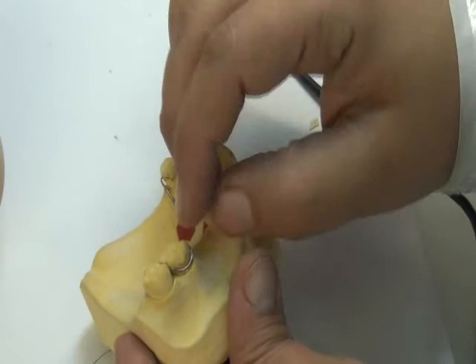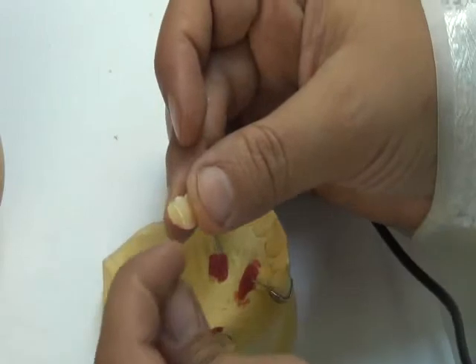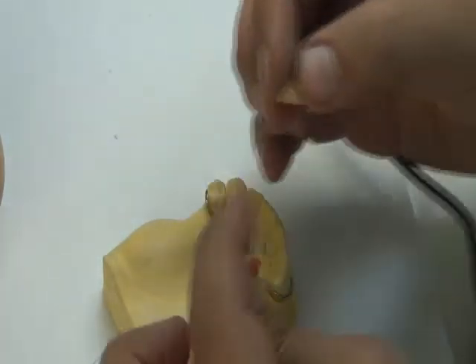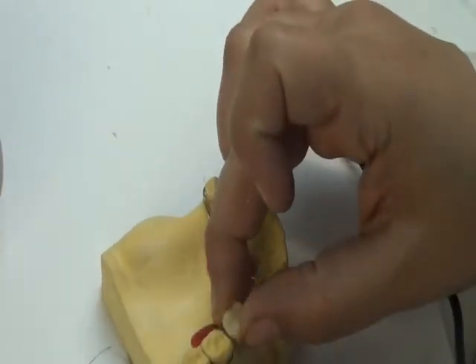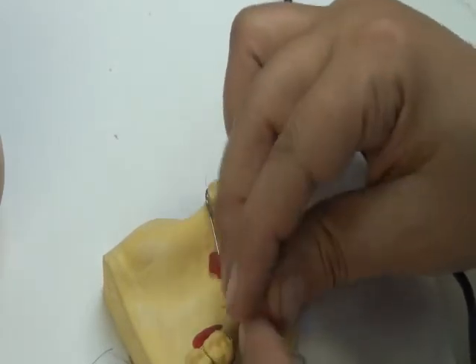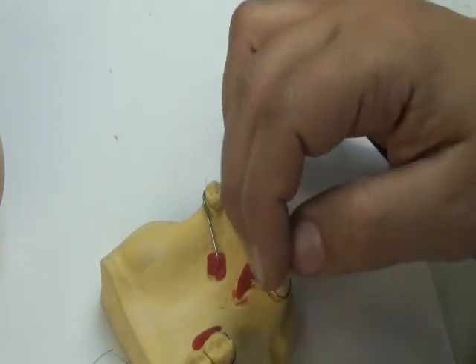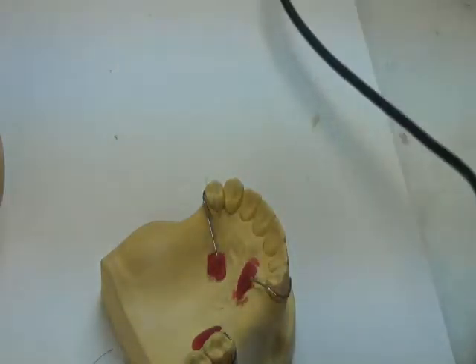If I find that my wire is almost okay, but there's still some interference, I am allowed to cut a small groove in the artificial tooth to aid this contact. So I might cut in here a small groove using the bur, and make sure that the tooth still comes in contact and it avoids the wire. This is allowed without ruining the buccal shape of the tooth, so it doesn't appear buccally. It's only on the lingual side, the proximal lingual side, where I can trim. But otherwise I should bend my wire away from this area. Okay? So this is the first point.